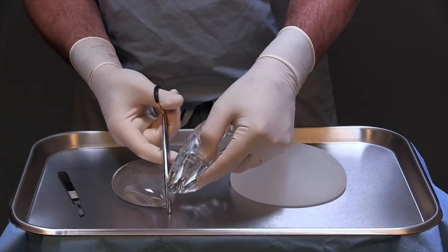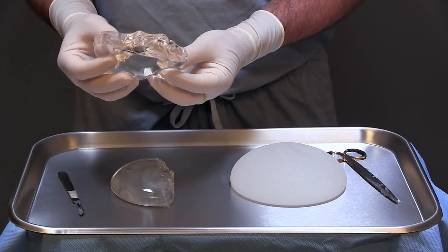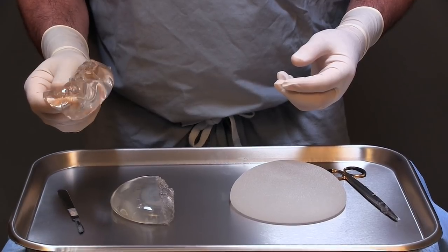As I cut this in half, you can see it's a little bit sticky, but it does hold its form even when I squeeze it and sort of bounces back into the same shape. So I have very little concern about that particular one.